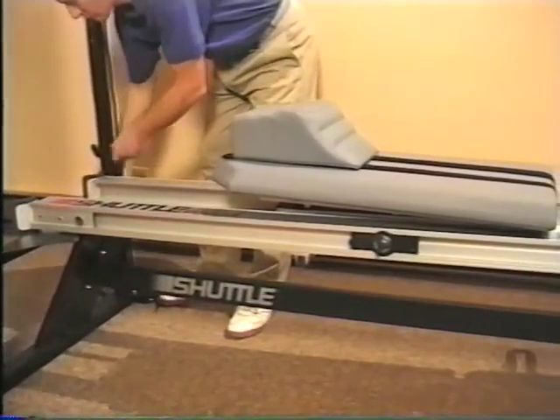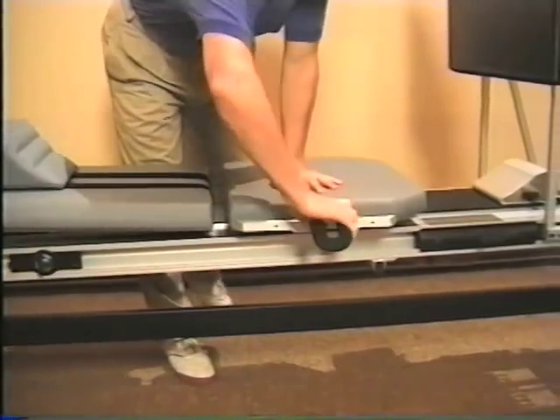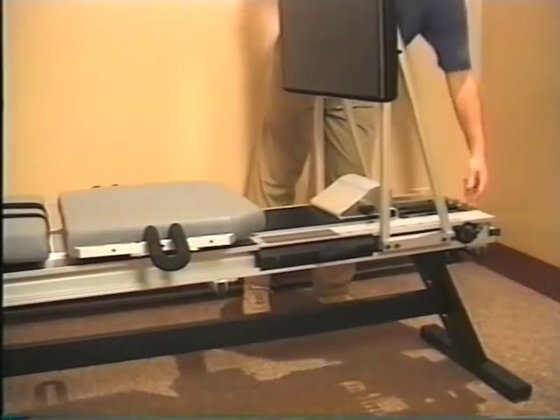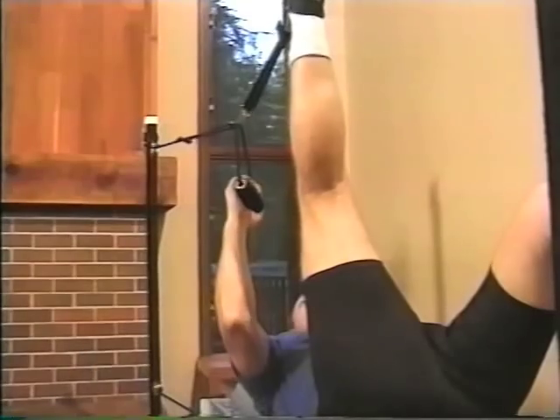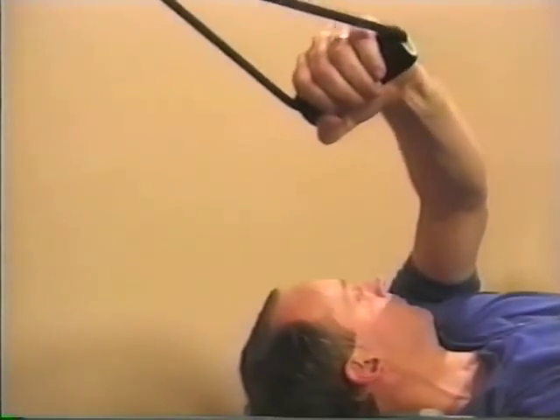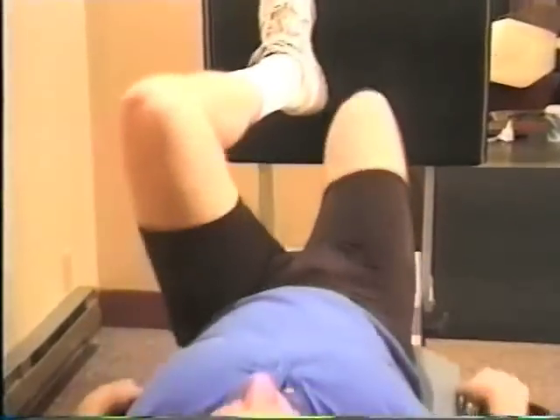In addition to facilitating early rehab activities, the shuttle excels in versatility by effectively optimizing every square inch of space it occupies. Patients with acute conditions to the most physically elite can utilize and benefit from the shuttle. A variety of activities for closed kinetic chain strengthening, range of motion, flexibility, stabilization, PNF patterns, proprioception, and plyometrics can be performed. Even cardiovascular programs can be designed to improve the overall fitness of the rehabilitating individual or the athlete in training.